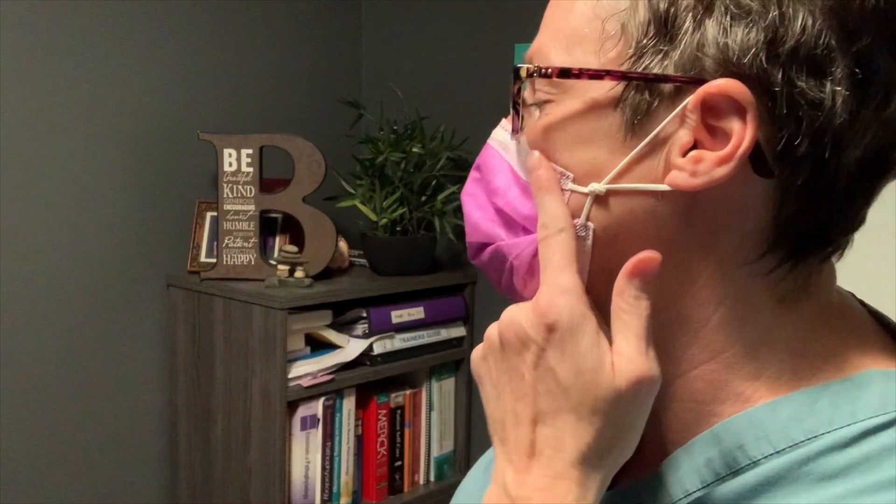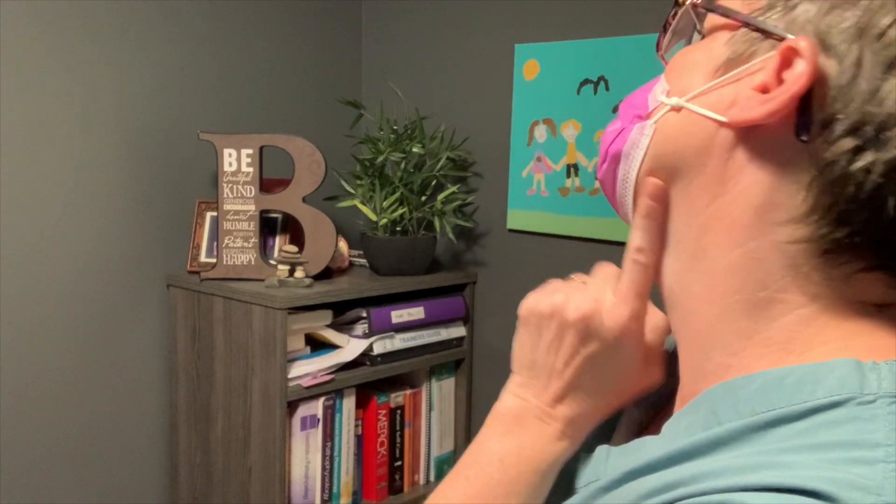I'm doing a stress test now to see if my glasses are going to fog up. What I love about this solution is that it's taking the nose bridge down away from my eyes — in my seven hacks video I found that when the bridge came across there, more air came up into my glasses and they would fog quickly. Not only do I have a good seal along the sides where you can't easily get your finger in, and down across my chin, I can breathe really hard and my glasses hardly fog up. That's a double win.